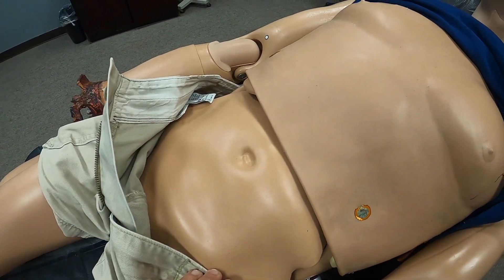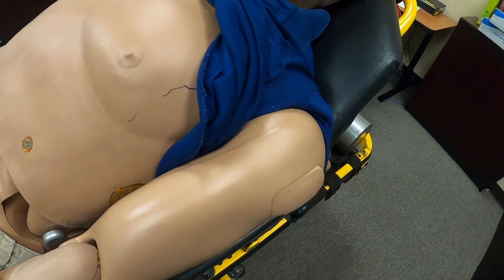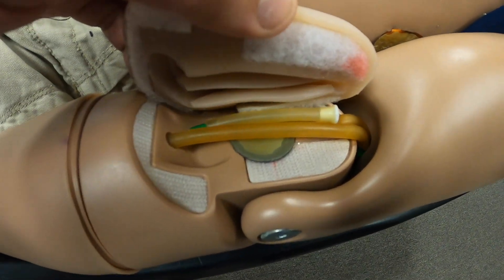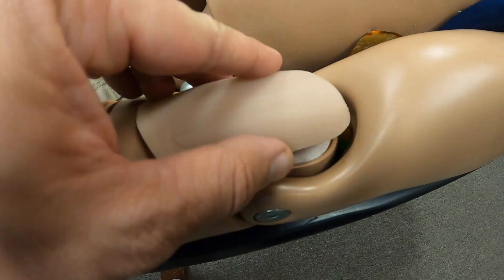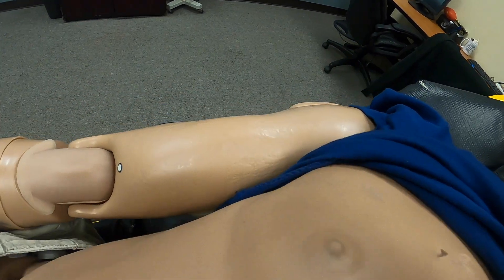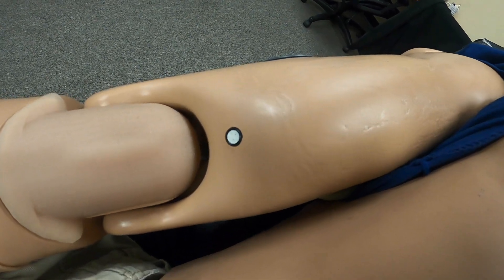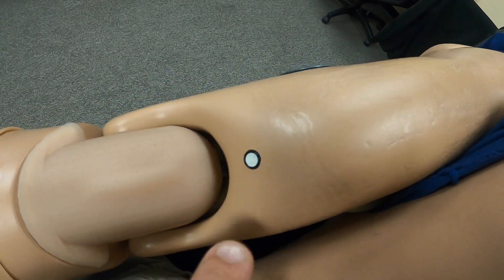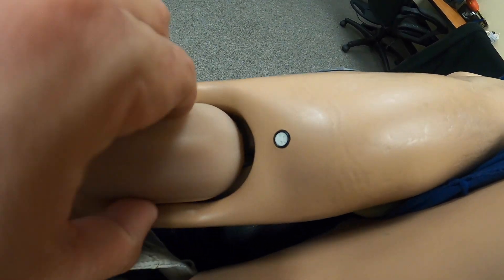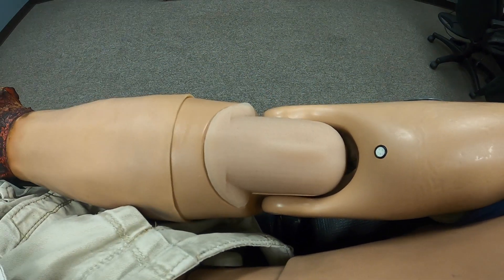Moving to the arms, on the normal arm there is a spot for IVs. Once we induct fluid or blood into the IV catheters, the students will actually get a flashback into the catheter. This side represents the blood pressure module — using this speaker, once the mannequin senses the pressure is appropriate, it will give the student audio feedback to obtain blood pressures. IVs can also be done on this side as well.